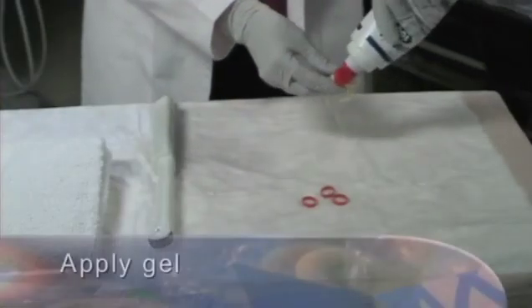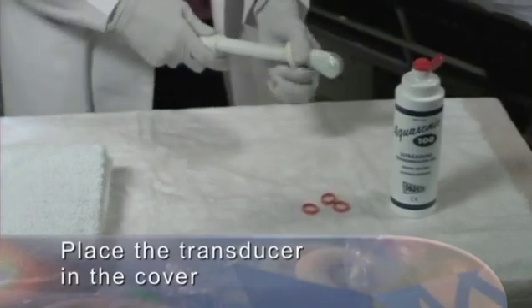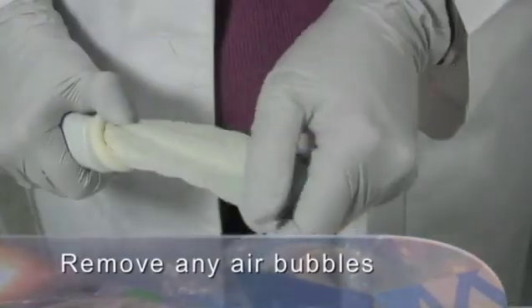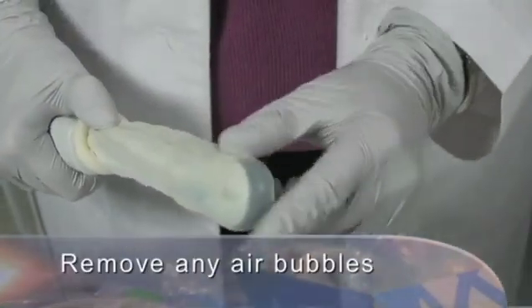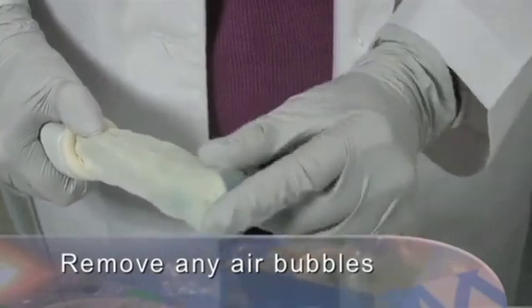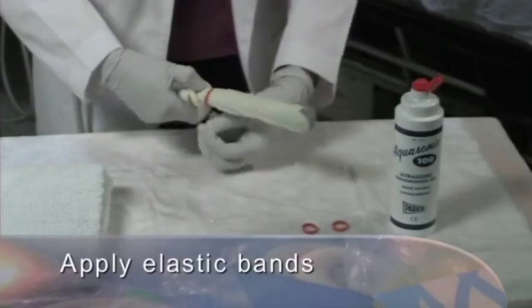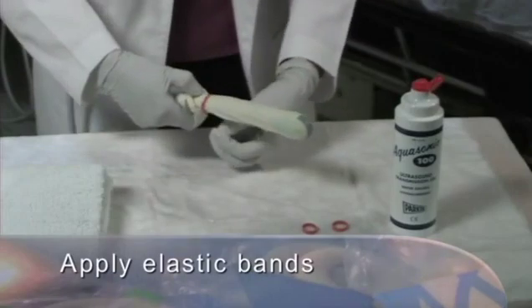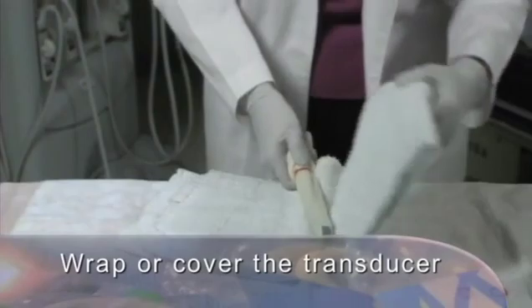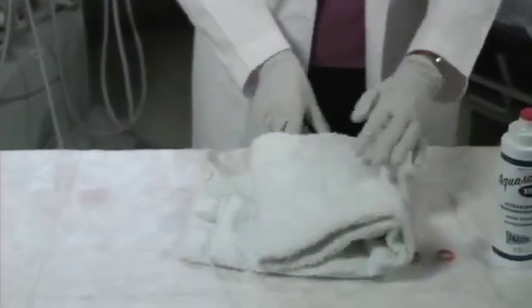Apply gel inside the transducer cover and place the transducer cover onto the transducer. Check carefully and remove any air bubbles that are between the transducer face and the transducer cover. Some labs use elastic bands to secure the cover. When done, wrap or cover the transducer until ready for use.